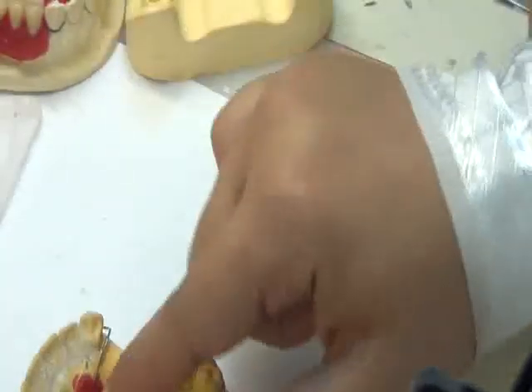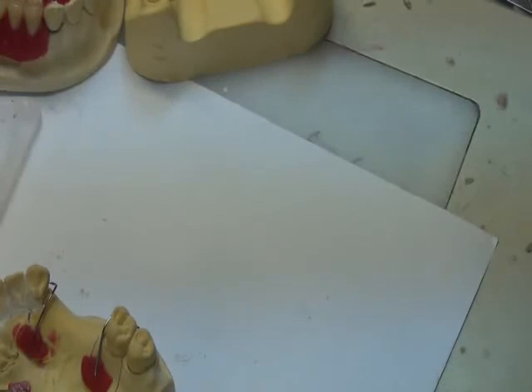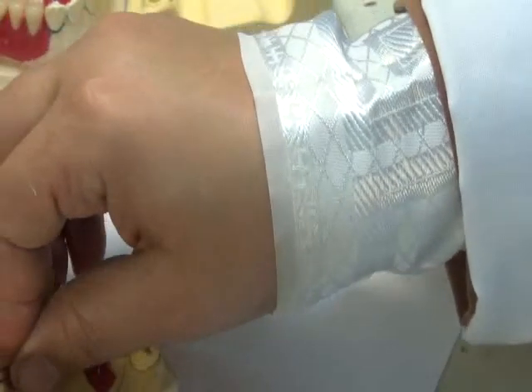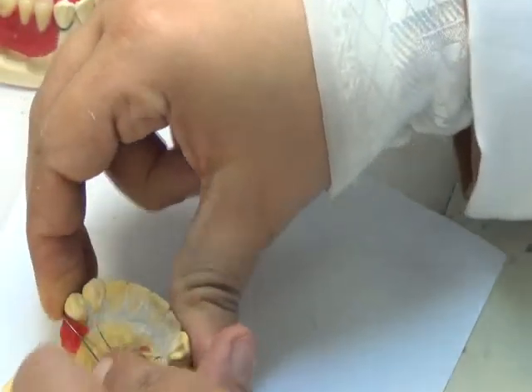Okay? Second step, I want to fix the wires. So I need to make sure the wires are fixed. When you fix the wires using one piece of utility wax, this wire can still move. So I want to put the wire in a manner that it also doesn't move, because at one end I told you it will move. So I'll put a small piece of utility wax over the blockage that I put proximally, and then put the wire in it and embed it in it. Of course, the wire will not be touching the tooth and will not be touching the blockage material. So this will help fix the wire into location.